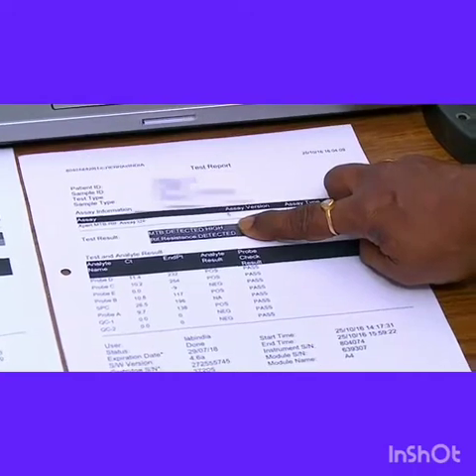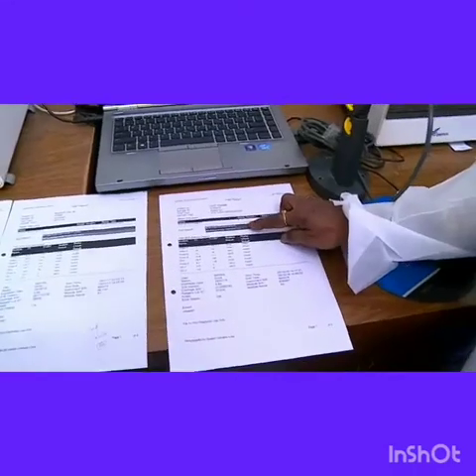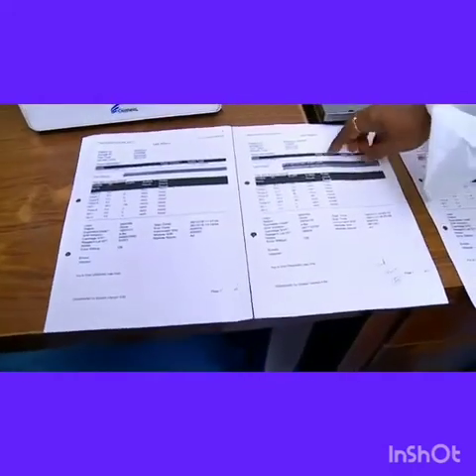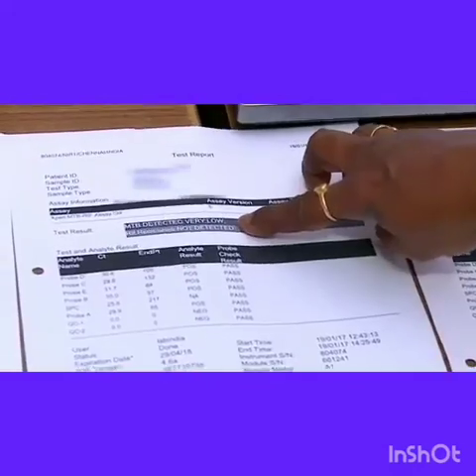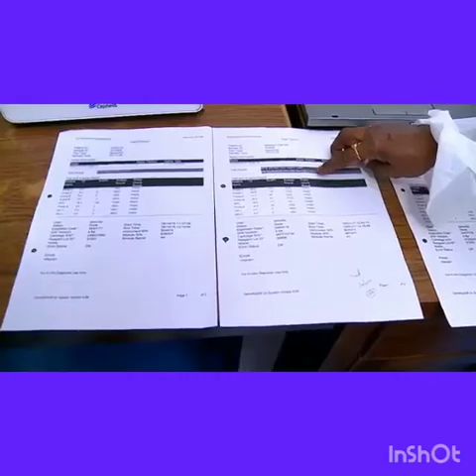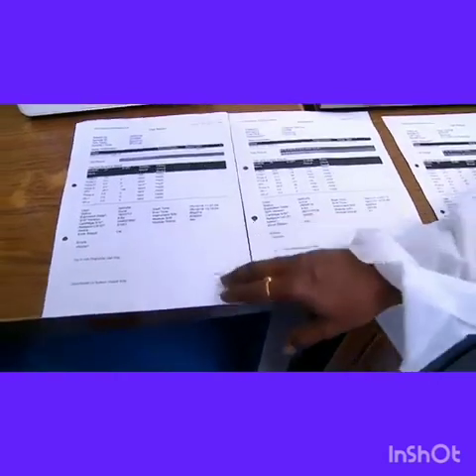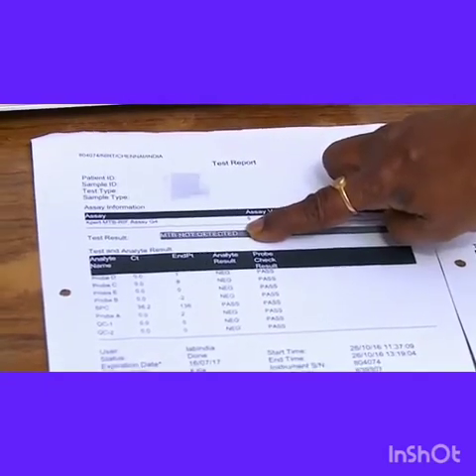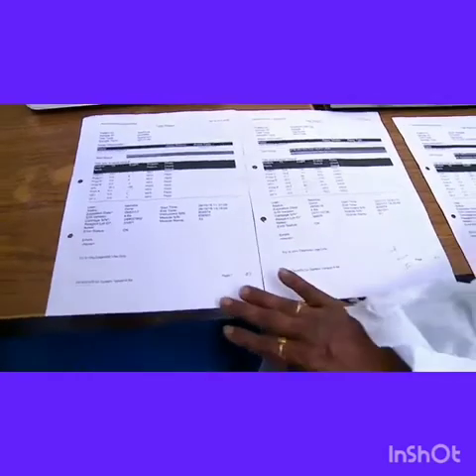Printouts can also be taken. In this case it is MTB detected high, but rifampicin resistance is also detected. The next case shows MTB detected with a low bacterial count and rifampicin resistance not detected. In this final case, MTB is not detected. The results can also be stored in Excel format.